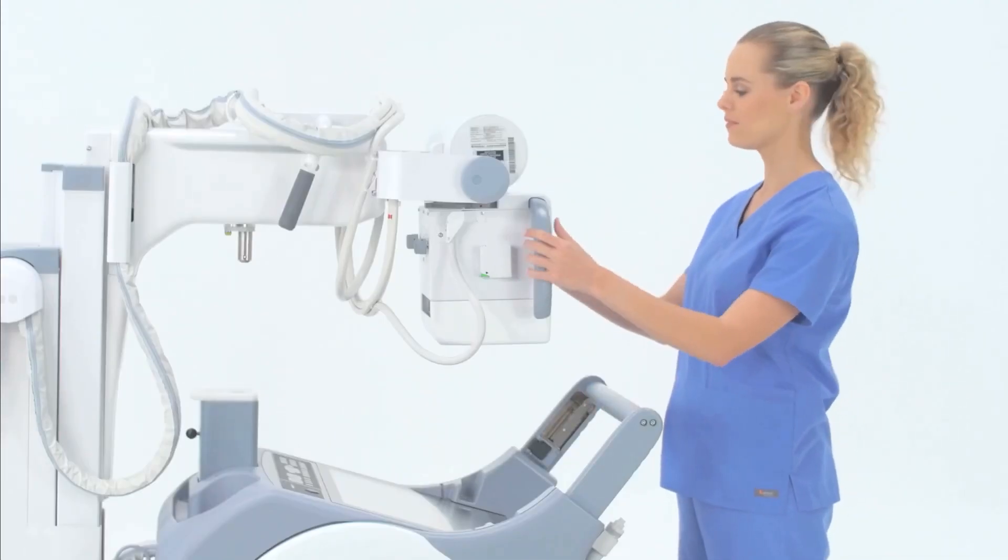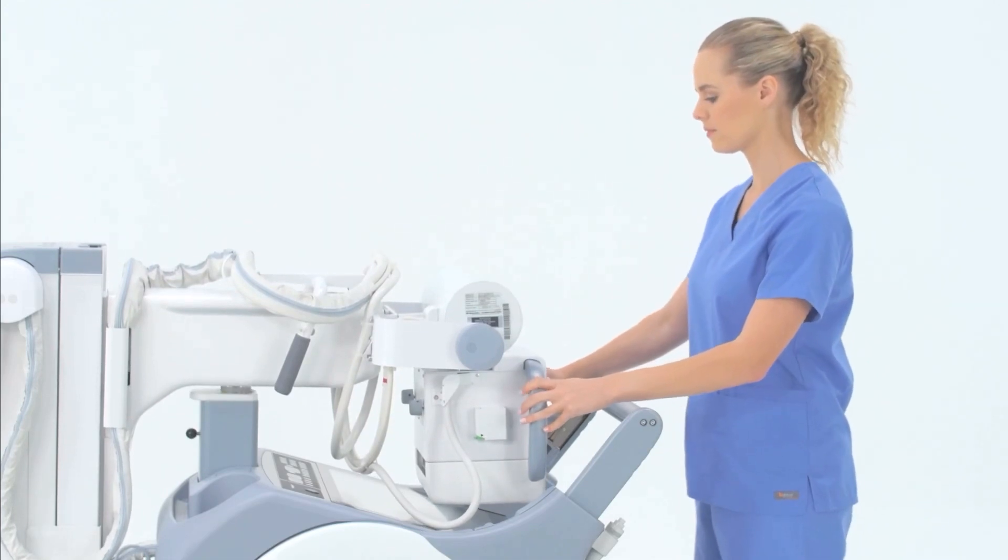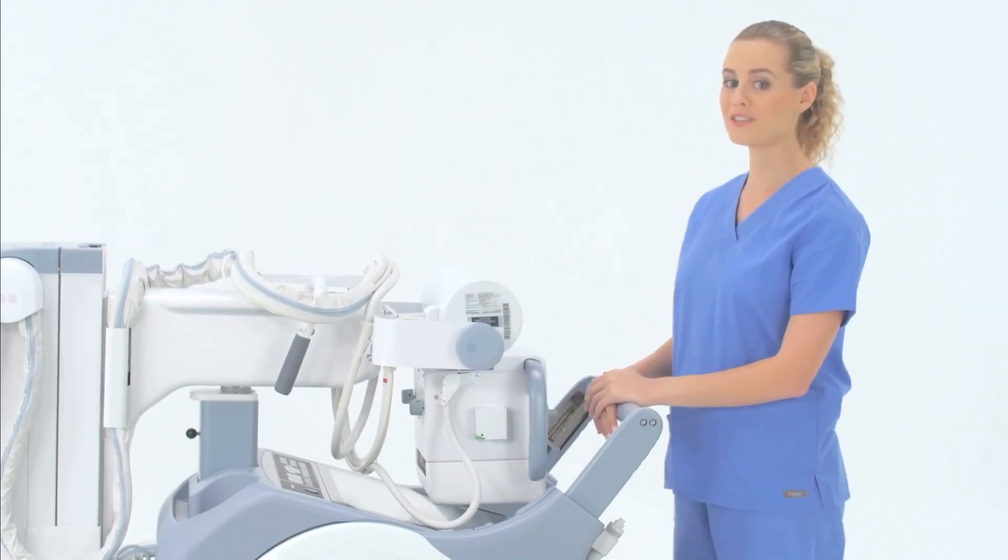Then, park the tube head. And don't forget to charge the unit.